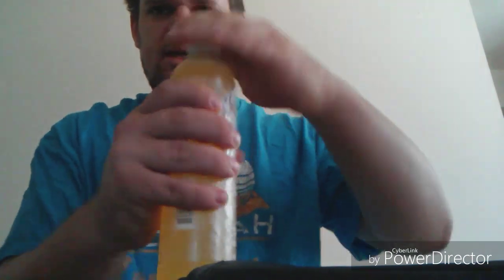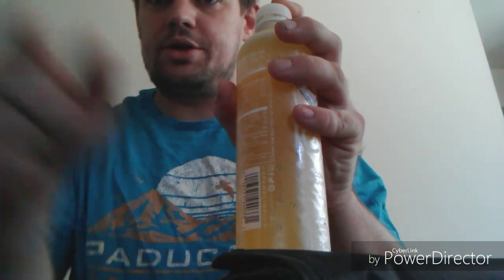And I am going to drink some of this. I will get back to you in 30 minutes. Alright now, so it's been 30 minutes. I'm going to retest my glucose level.